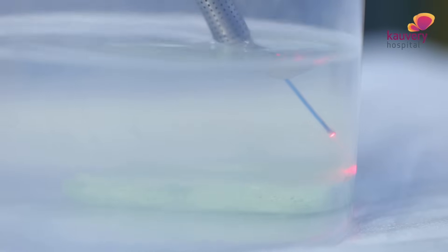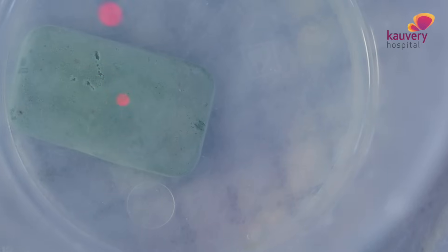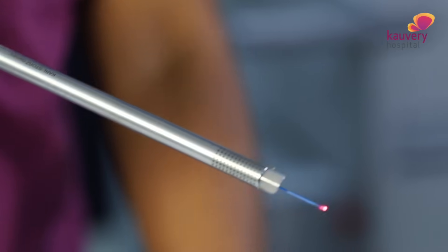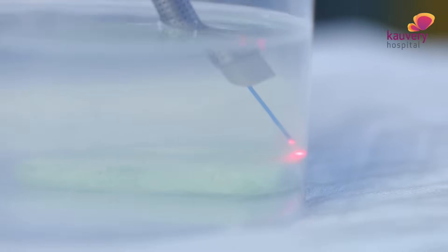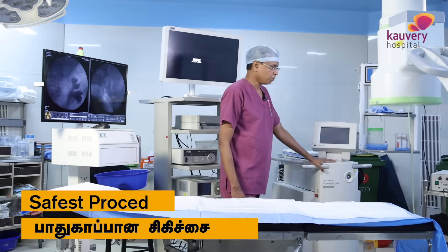Laser is a very powerful energy — it should be worked under water or fluid medium, otherwise it will damage our eyes. I will show you a small demonstration of how it works, because urological lasers — or any laser except carbon dioxide — work under water or a fluid medium. You can see a small piece of soap being cut by the laser. The advantage of this laser is that the penetration power is only 0.2 mm, so damage to adjacent organs is minimal. Any equipment used inside the human body must be safe and should not harm adjacent structures. This is the safest laser in urology.